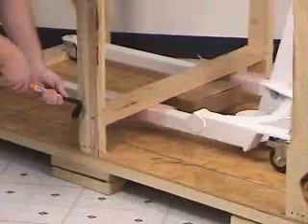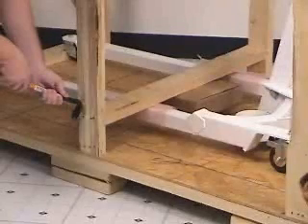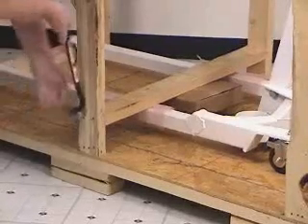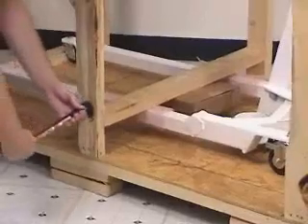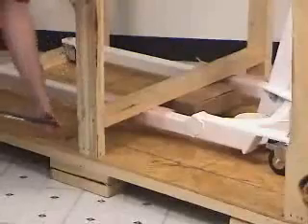Now you can remove the center horizontal bracing board over the legs of the scale. This board is firmly nailed in between two vertical boards. Begin by pulling out the two nails on each side of the wooden container to loosen it first. It may take several taps of the hammer to pry it away from the first vertical board, at which point it can easily be pulled away from the other vertical board. Also, remove the small parts box that is packed securely under the scale and set it aside — it contains the folded-up patient stretcher. We will deal with this later.